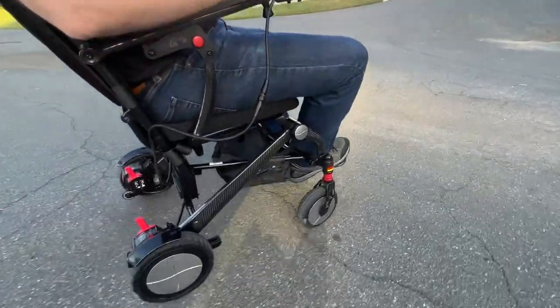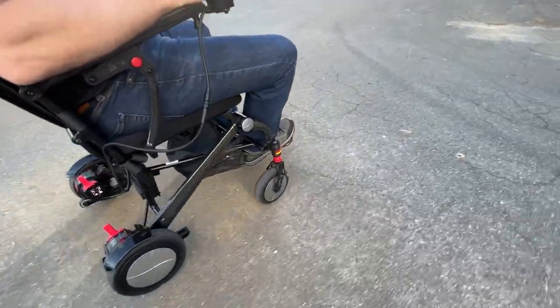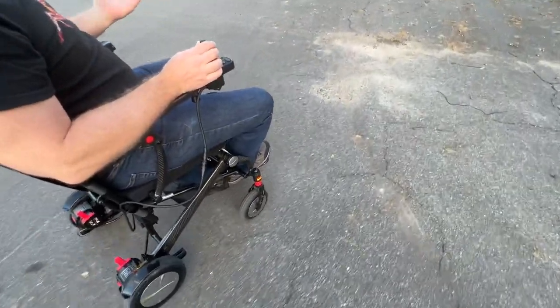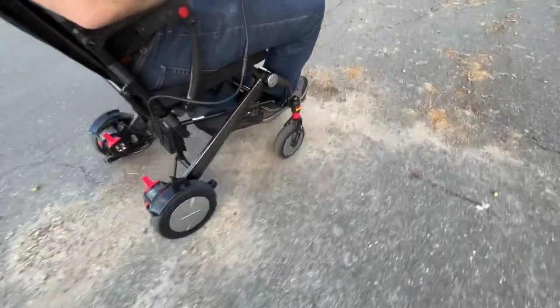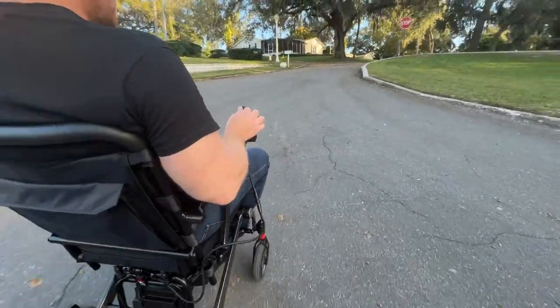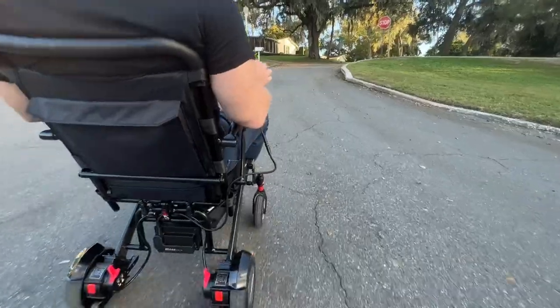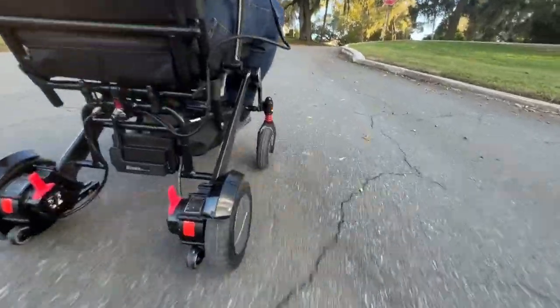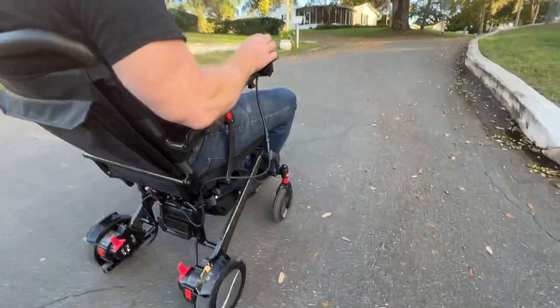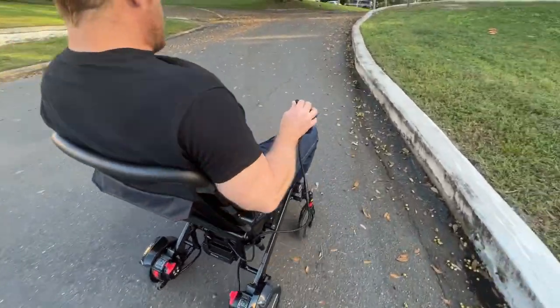The e-torque allows me to have a lot more control over the joystick. I'm not going full blast right now — I'm probably going through the worst spot I can go through. I made it through that spot. I'm giving the chair some juice and it's actually picking up. Giving it more juice and now I'm putting the joystick a little bit to my left to accommodate.